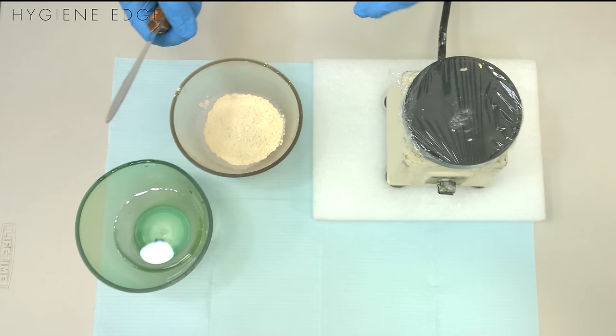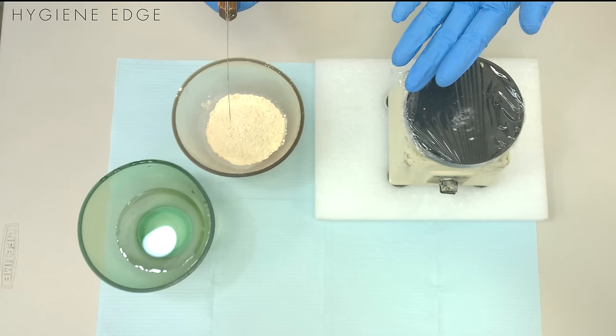This is not the correct measurements because usually you're just going out of the sink, so you're just eyeballing it. When you first start, I would recommend actually measuring it out until you know how the consistency should look.